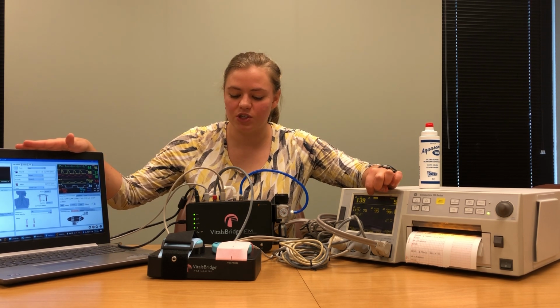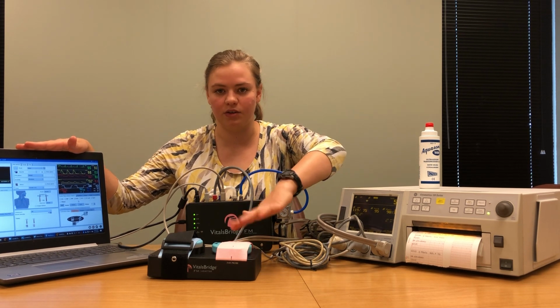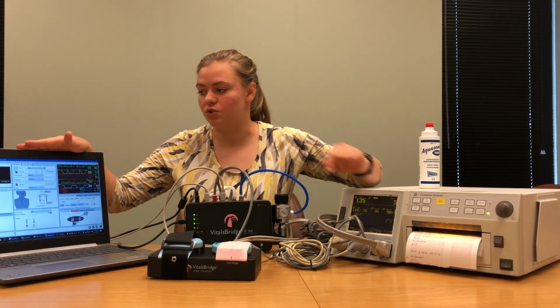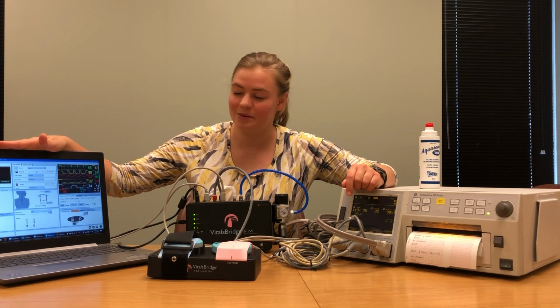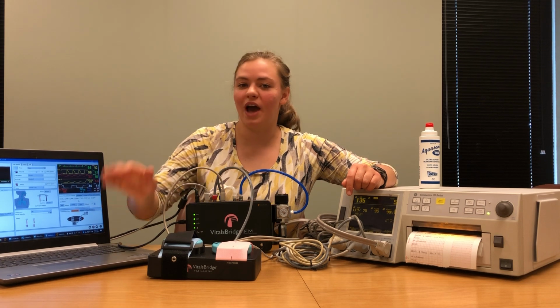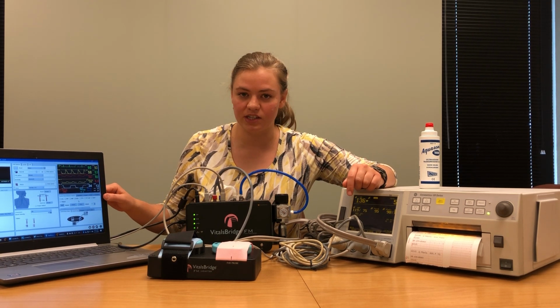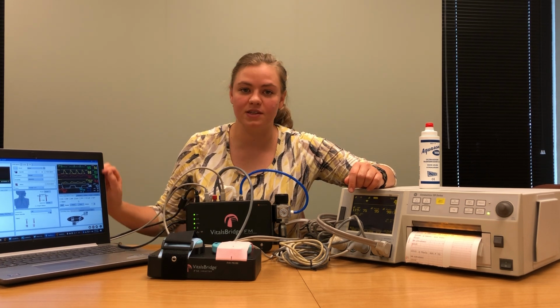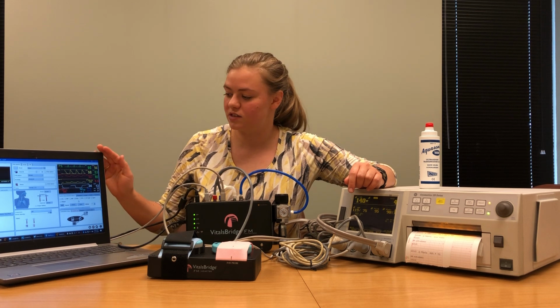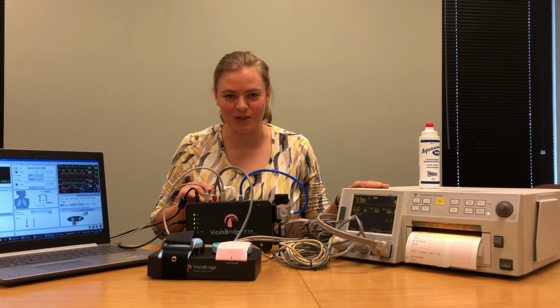One other thing to note is when using the VitalsBridge FM, if you would like to simulate the fetal heart rate signals and the contraction signals, you're going to need to be using the SimMom Laerdal Leap software. Once you have the simulation connected and you've checkboxed everything that you have connected to your VitalsBridge, you can then control the vital signs directly from the simulation page, and those vital signs will be transmitted through the VitalsBridge and displayed on your patient monitor.